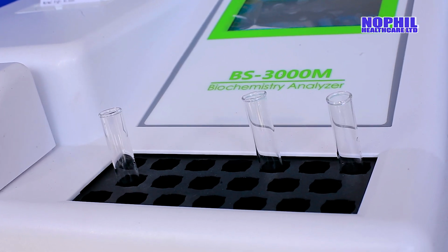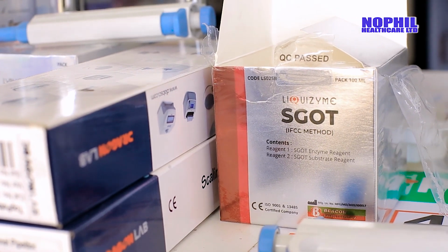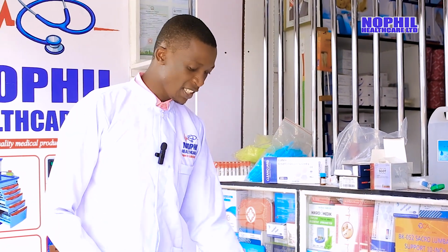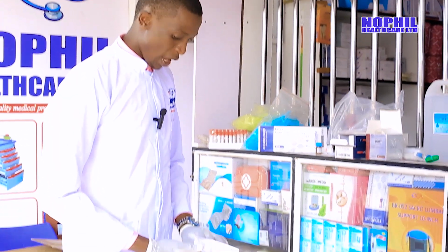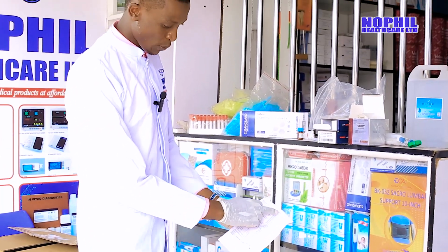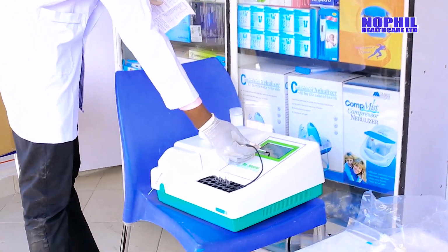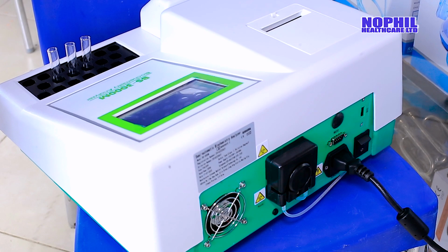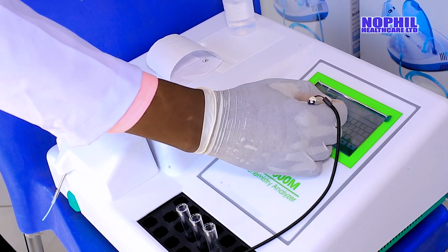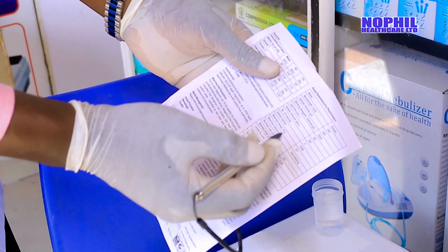For demonstration purposes, we want to do a very simple illustration for a test by the name SGOT. Now, when you want to program, let's say SGOT, the machine is very easy to use. As you can see, the reagent has the various parameters. You just click using the pen touch. You just click once on the display, and then you come to the function edit. You just click SGOT. Then you click OK. Then you are done. Here you can see all the parameters, they are there.